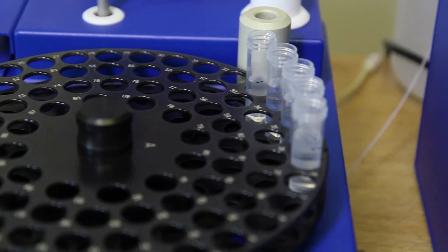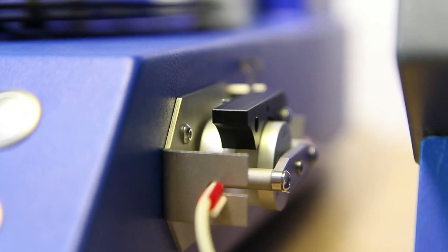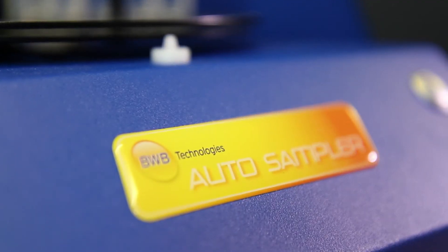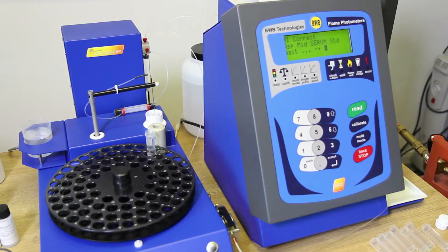Welcome to the BWB training series. Today we will be looking at how to set up a tray using the BWB Auto Fluid Handling System and the BWB Bio Flame Photometer.